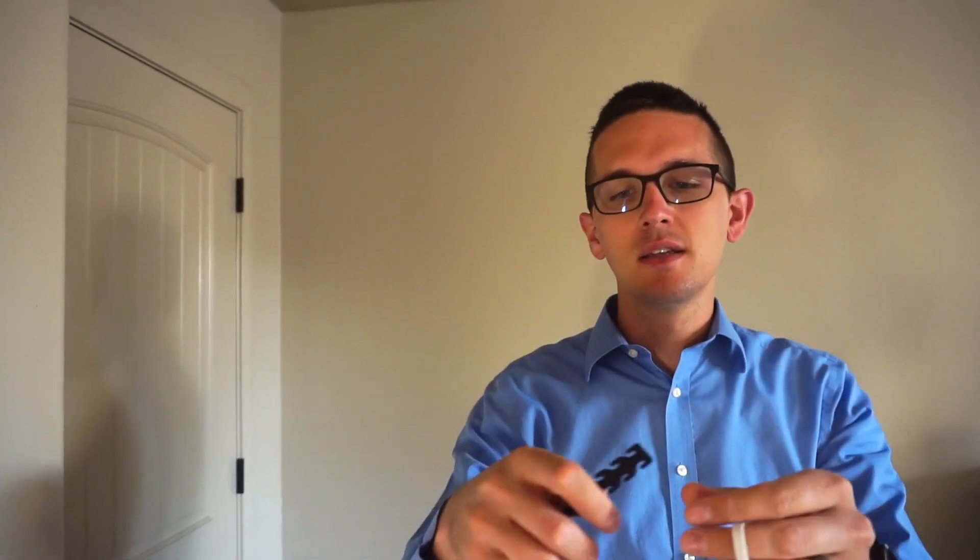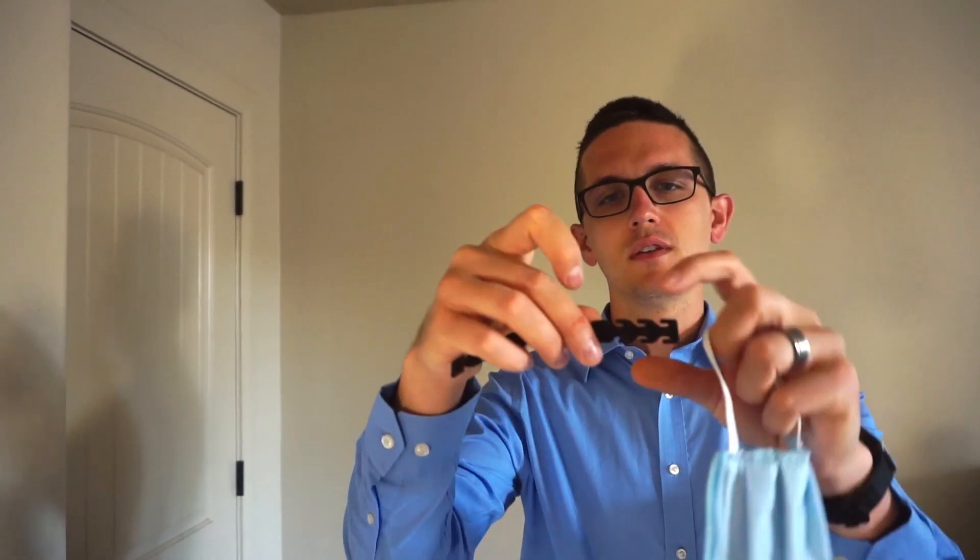So what this does is with these little loops—and there's different sizes—you feed the mask through there. And then this other one I'm going to have to kind of do behind my back.